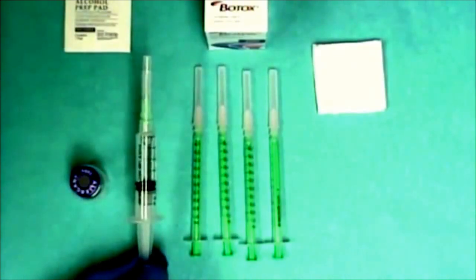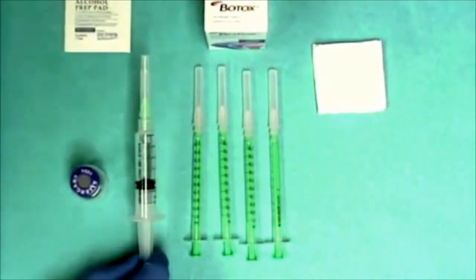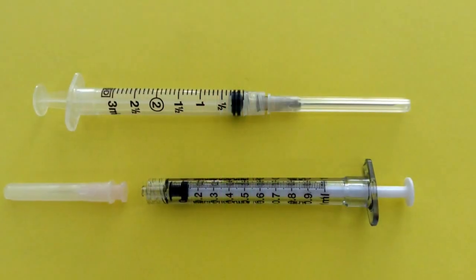But remember that needles between 18 and 25 gauge work for this mix, where the higher the gauge number, the thinner the needle will be.